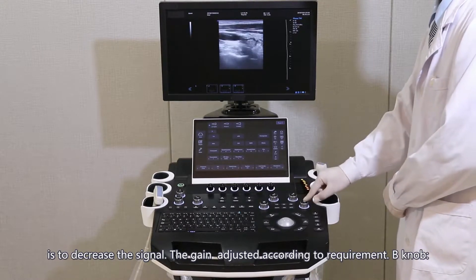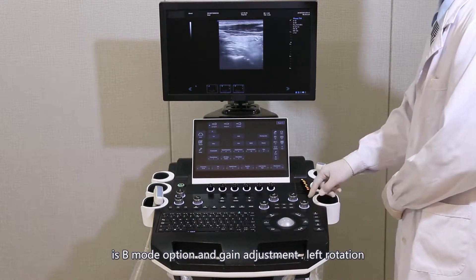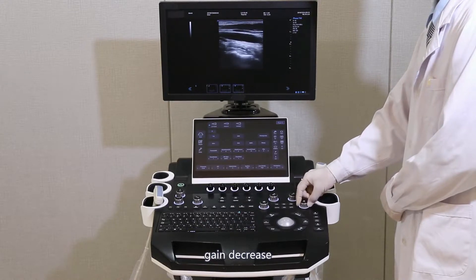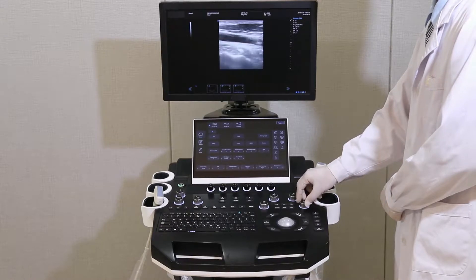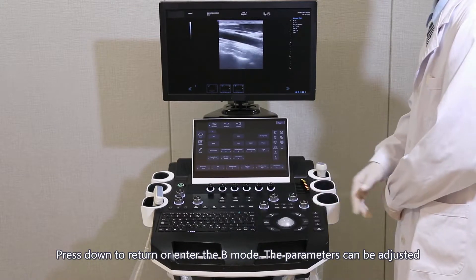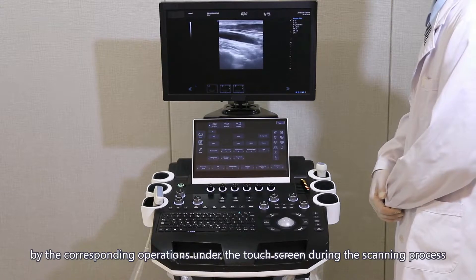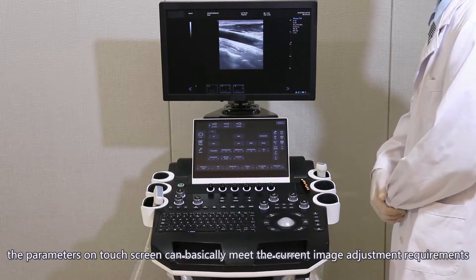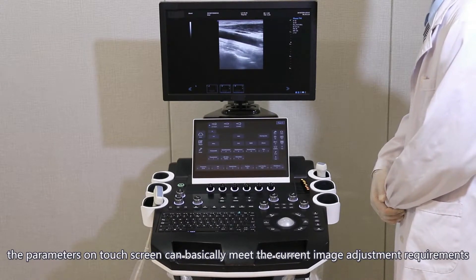B-knop is a B-mode option and gain adjustment: left rotation decreases gain, right rotation increases gain. Press down to return or enter the B-mode. The parameters can be adjusted by the corresponding operations on the touch screen during the scanning process, which can basically meet the current image adjustment requirements.